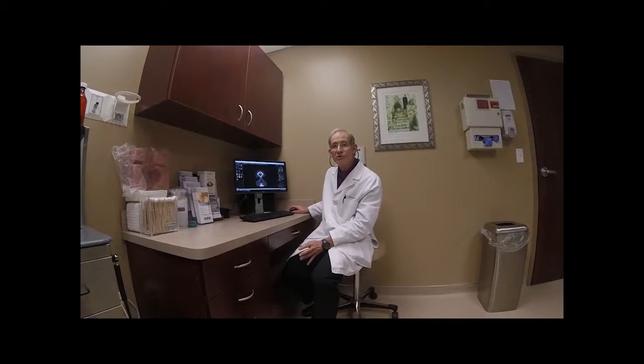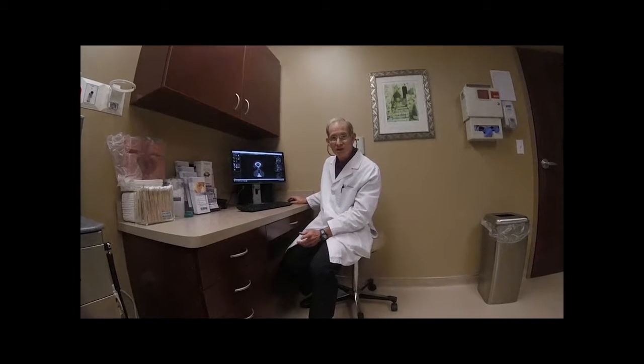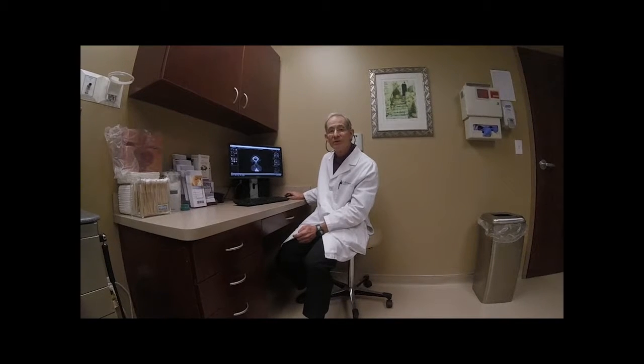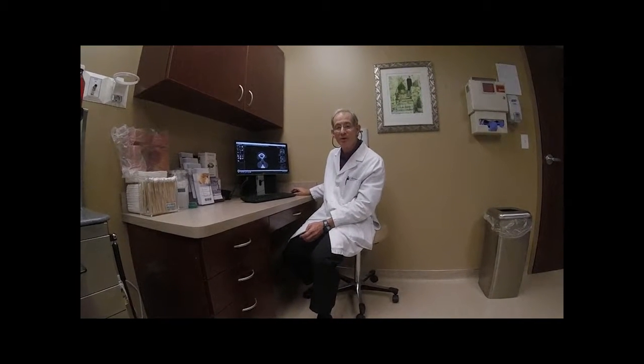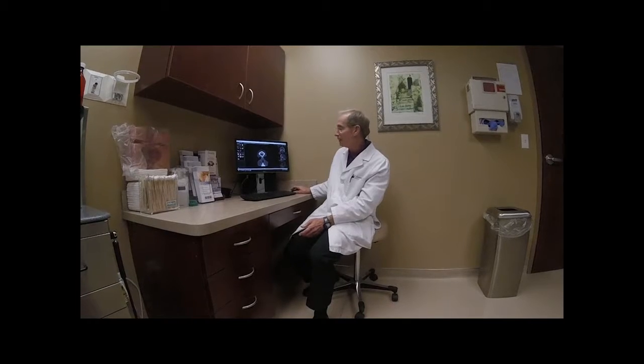Hello, I'm Dr. Simons. I'm going to review a sinus CT scan that was done in our office and explain the findings in the anatomy that we see on CT scanning.